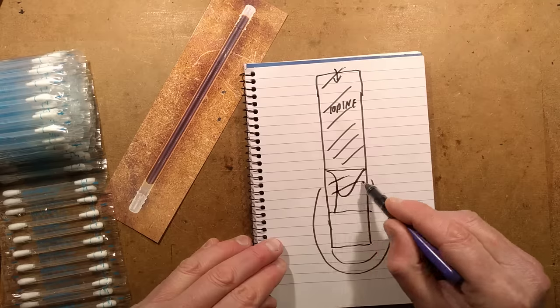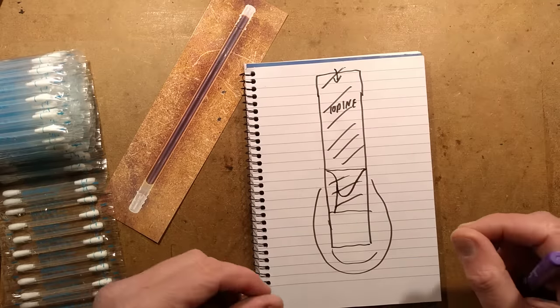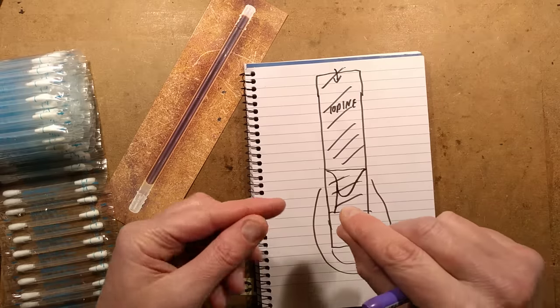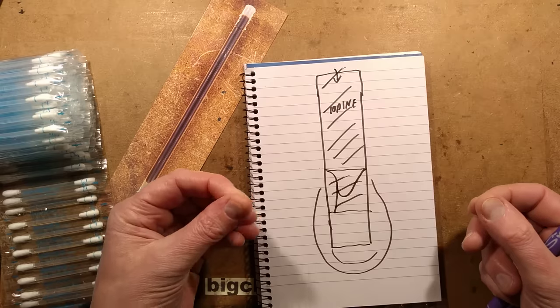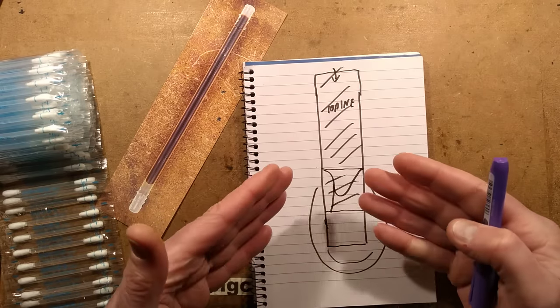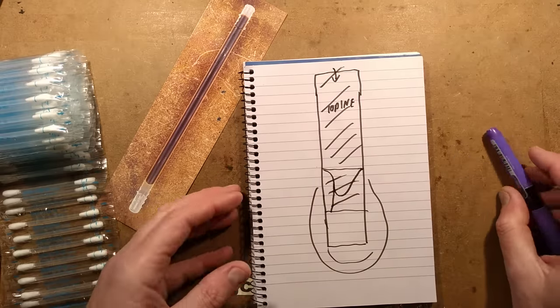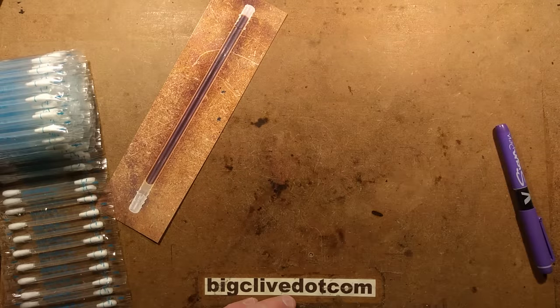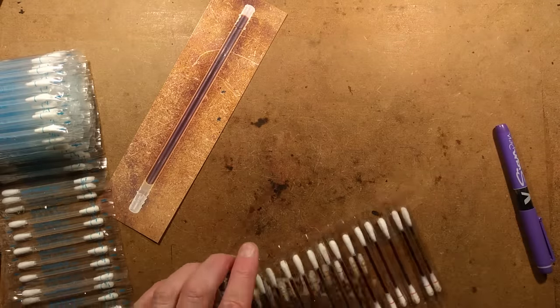This clear goo — because it is kind of goo — I picked some out and rubbed it between my fingers and it felt sticky and resinous. Its viscosity and characteristics have been completely optimised for this effect. I'm trying to work out how I could show this, but it's sub-millimetre, so it might be quite tricky.